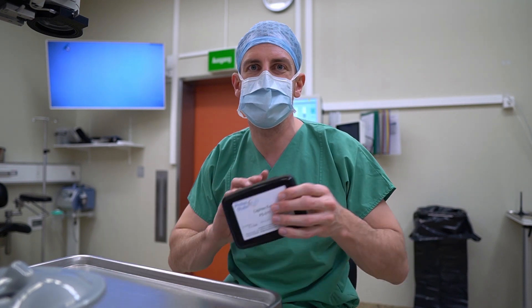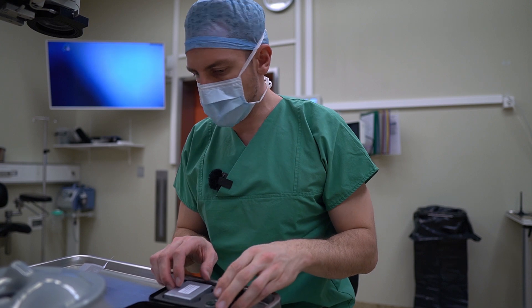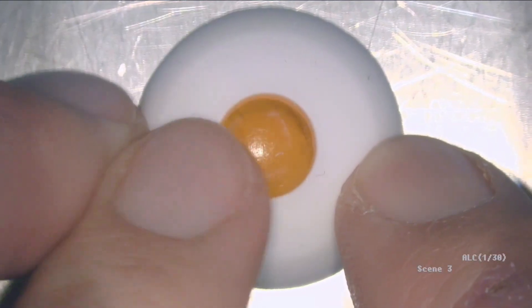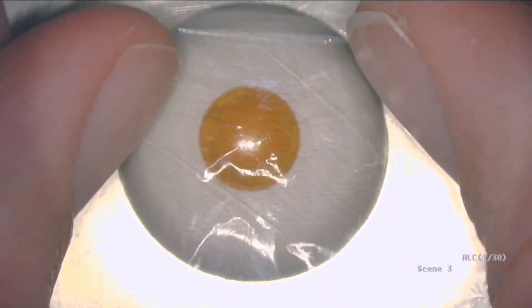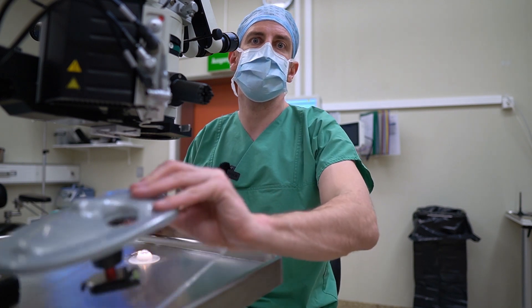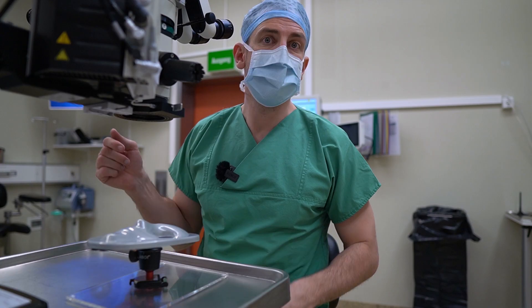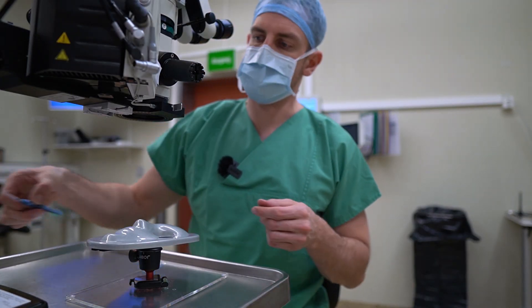Here we are in the OR and we are going to test the Capex Eye. There's a little instruction manual that comes with it and we're going to set it up. This is the eye itself. I can take out this part and take a little lens out. I'm going to put this lens in here, then take one of these sheets and put that fake capsule over the lens, and then put this on. You could be working with just the eye on the table, but since I do have this practice head, I will use it and put the eye in here.